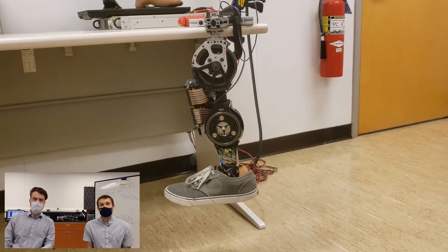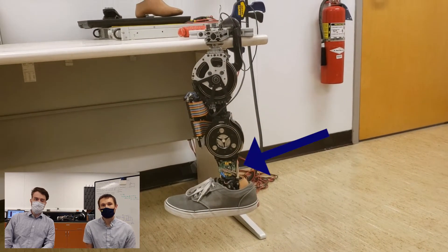Another interesting aspect of this design is the four-bar linkage that we use to transmit torque from the ankle motor down to the foot. While this linkage doesn't amplify any torque, what it does is allow us to locate the ankle motor more on the proximal end of the shank. This reduces the inertial effects of the motor felt at the knee and the torque required to accelerate the shank, reducing loads applied to the socket and overall creating a more comfortable experience for the user.